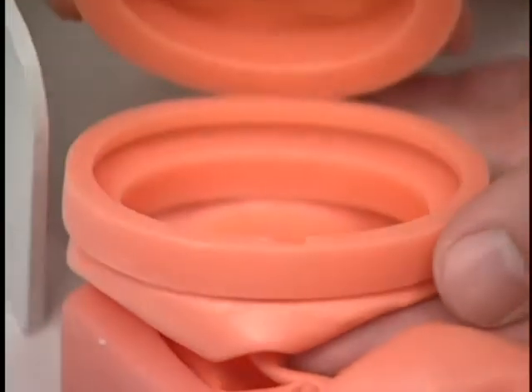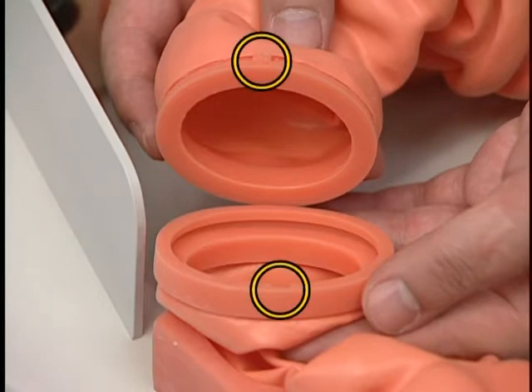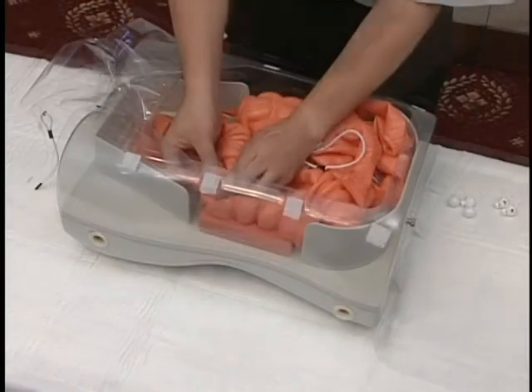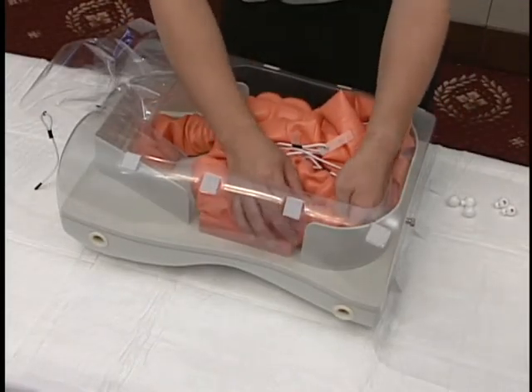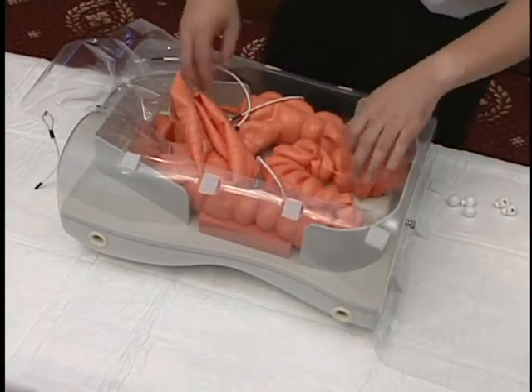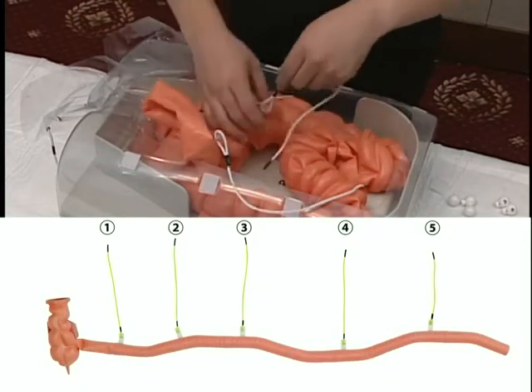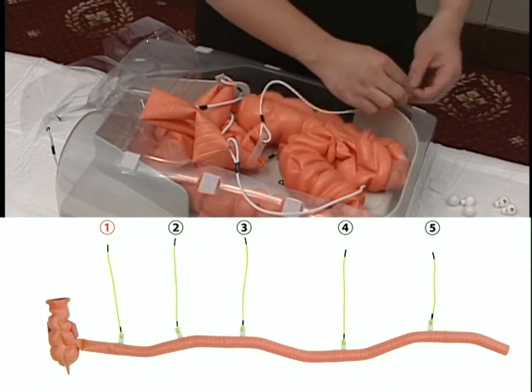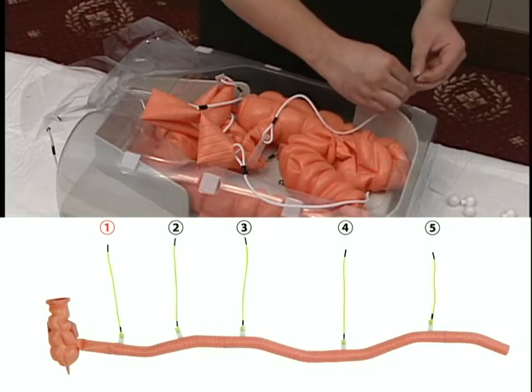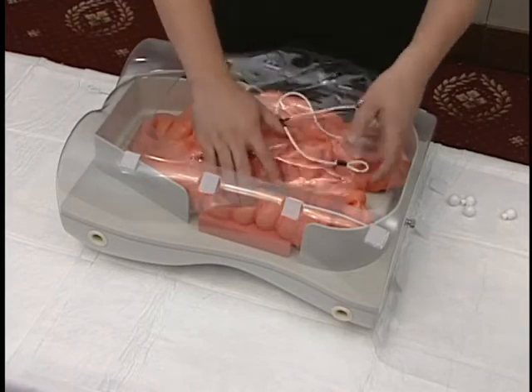Attach the connectors on each of the removed intestine sections. Align the male and female match marks when connecting two sections. Pass the first rubber strap through the hole in the transparent cover from the ascending colon, and secure in place with the round stopper beyond the black part of the rubber strap. Cover with the intestine separator sheet.